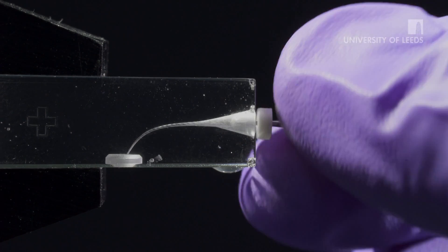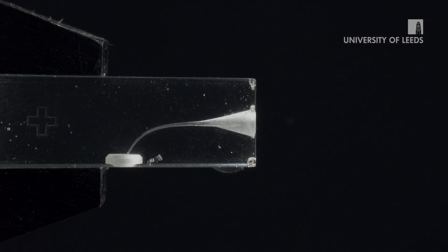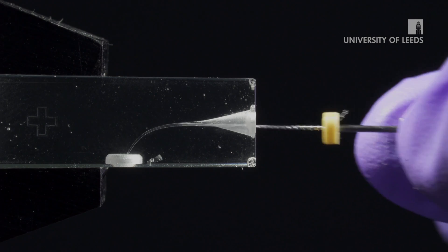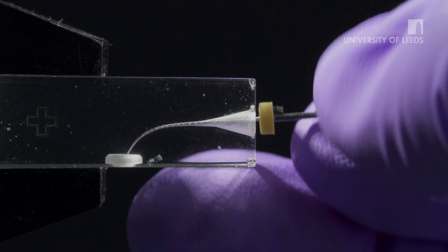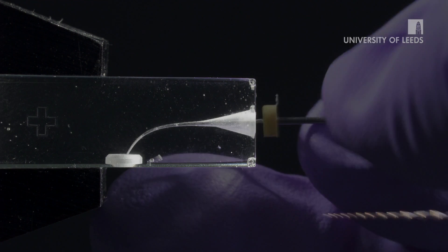As before, work the size 10 and then the size 15 to length using a watch winding motion until the size 15 file is loose in the canal. Having completed the apical glide path, the WaveOne Gold primary file can be taken to full working length.